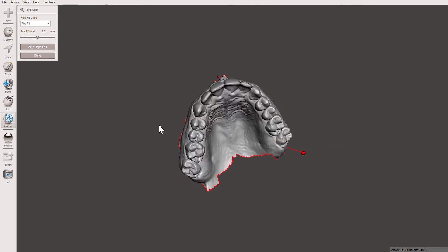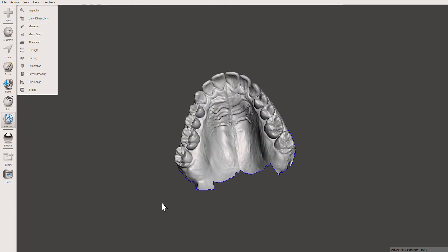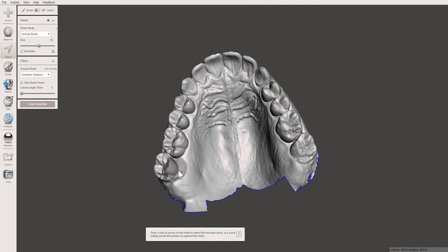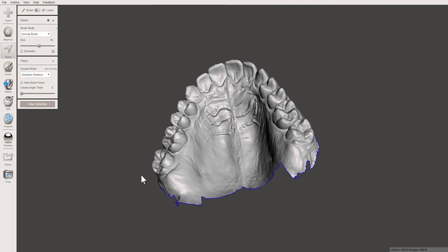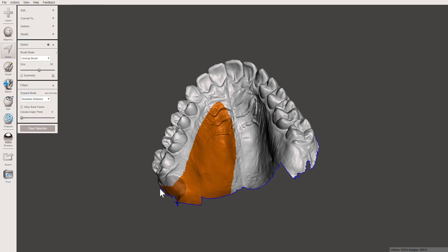I'll click Done once that's all done. Now I can trim up the model to make it nice and clean. Press Select — I'll show you two ways to do this. The first method is the lasso method: start on the gray area, not on the model, then click and drag throughout the model where you want to trim. Make sure to connect the circle so it only selects where you want to trim, then press Delete.